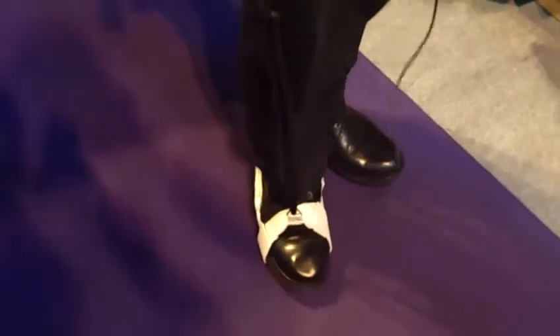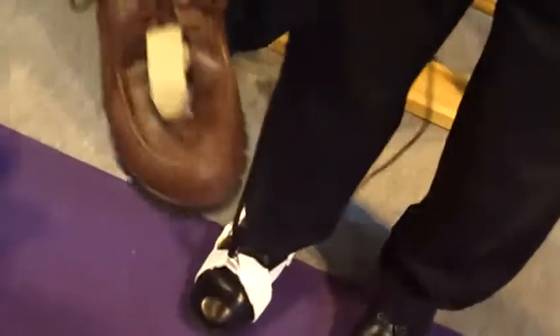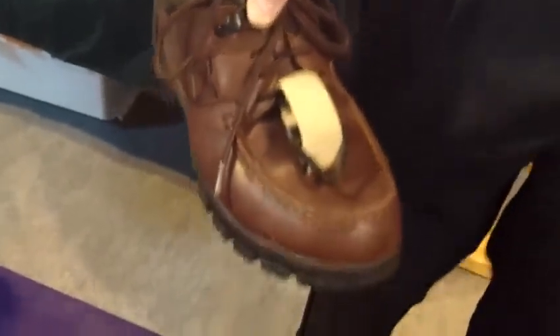Available for one leg or two legs. We've got the bit that goes around the shoe, and we've got this bit here which goes around the shoelaces or sandal straps. Lots of options for you.